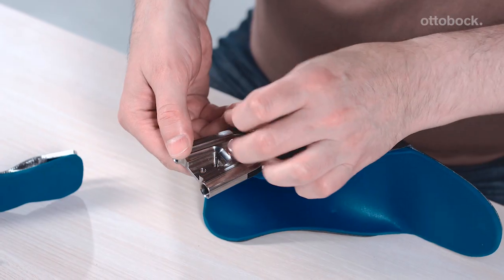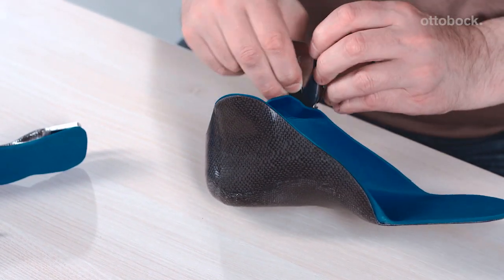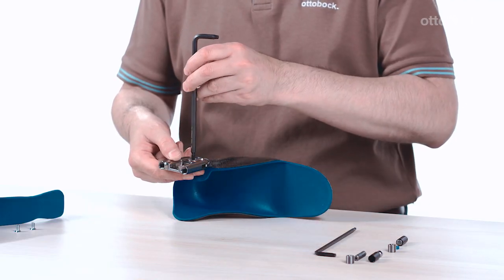The stops of the axial washers must be positioned in the receivers on the underside of the joint. Slide the bearing nut from the back side through the basic piece and the foot stirrup, and use the joint screw to screw it from the front. The joint screw must be tightened using the specified torques during final installation.